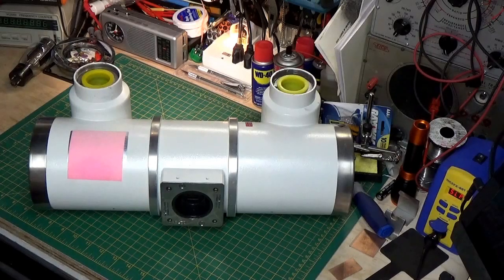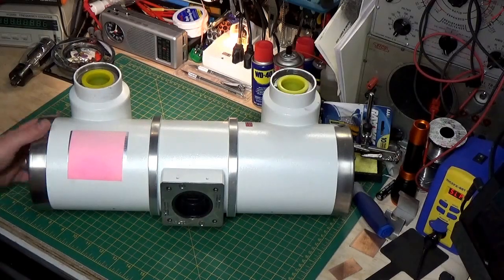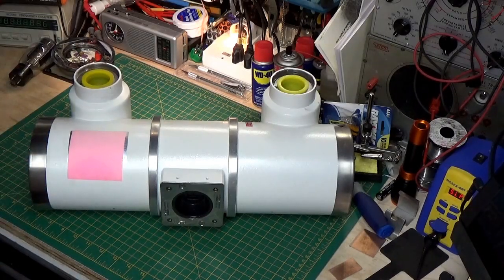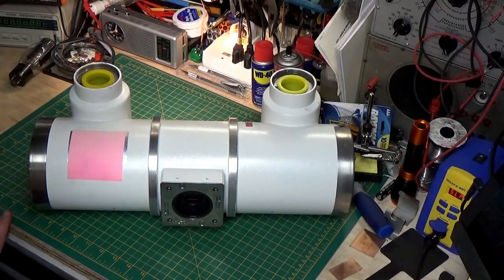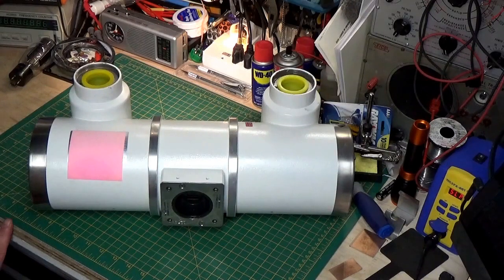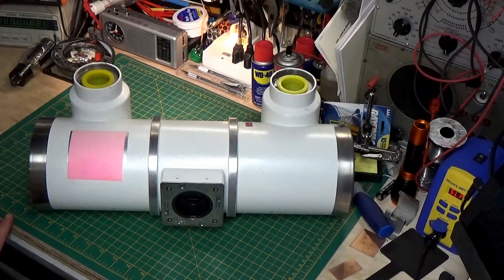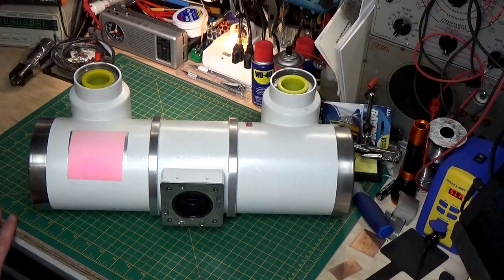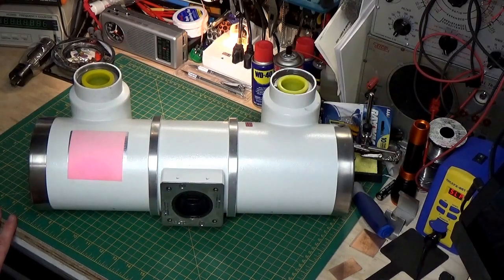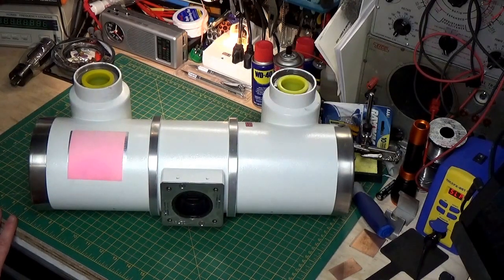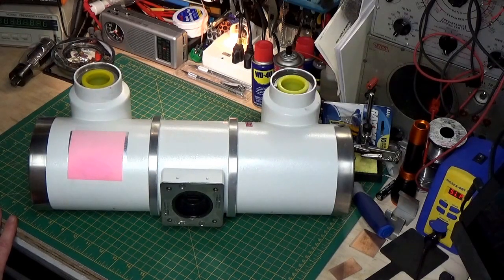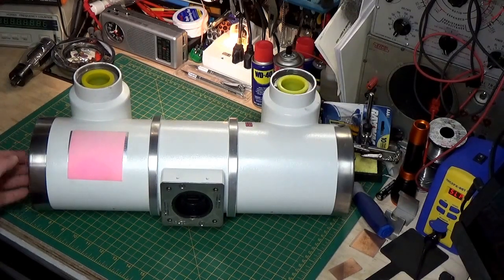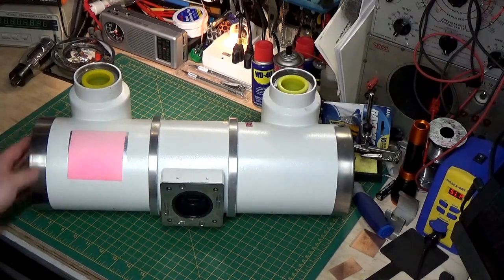What you see before you here is a conventional x-ray tube out of a hospital x-ray machine, and I thought I'd go a little bit over on some theory of how x-ray works and how an x-ray tube specifically works.